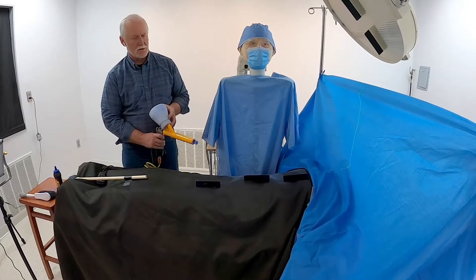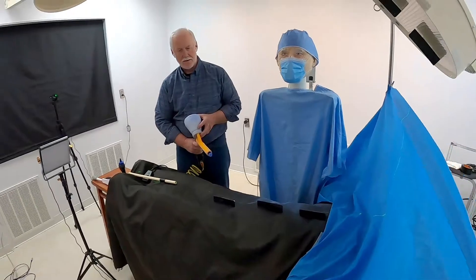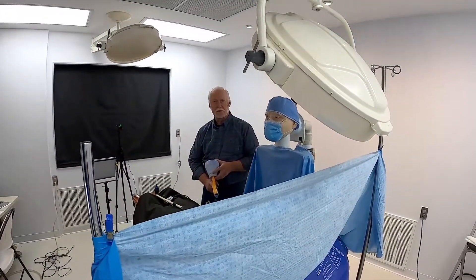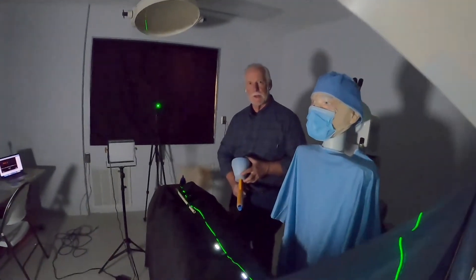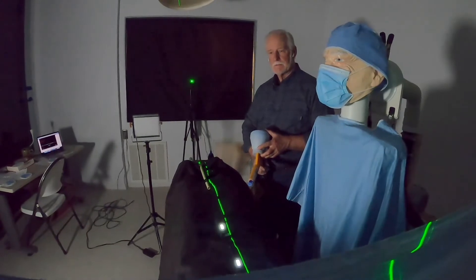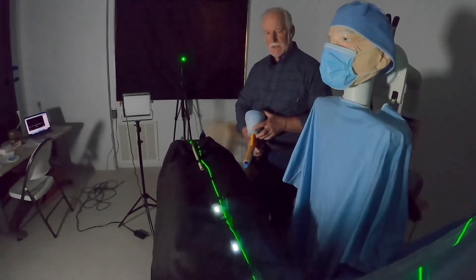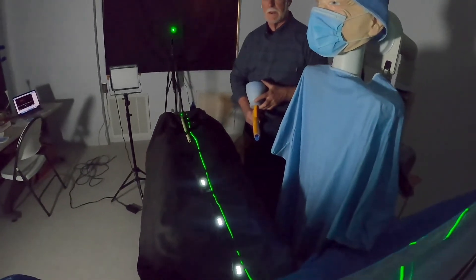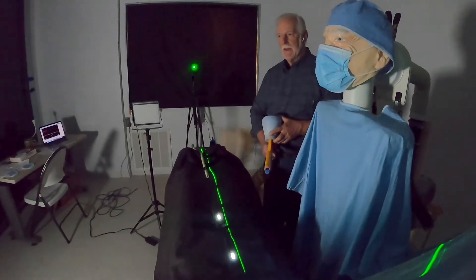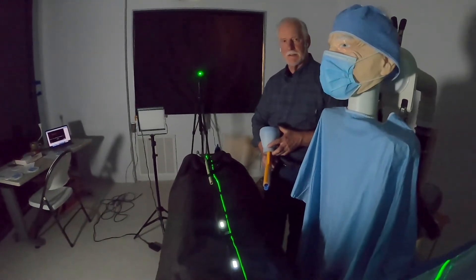We're back to the chalk. We're going to leave the lights on for this because you will see it's quite different. You can see that it's just going off the table just like it's supposed to, and not up into the field. We'll do this ten times just like we did the last one, so this is a fair evaluation comparing the two systems to each other. Let me do it one more time here so that you can watch it. Now we'll turn off the lights so you can see what it looks like from the laser perspective — you may see it just down by the table a little bit, but you certainly don't see it coming up in front of the camera. That was three — let's fast-forward through the next seven, so we've done ten of these as well.